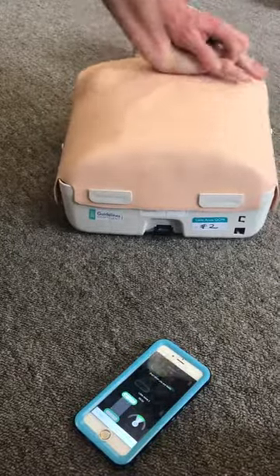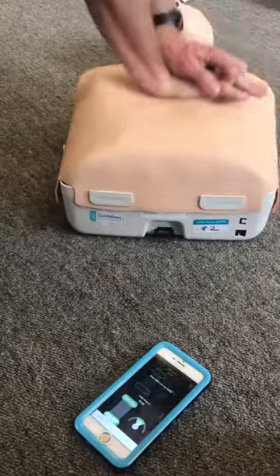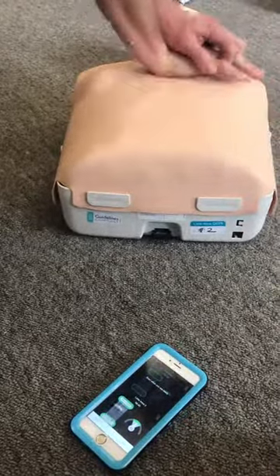You can see from the screen here that it's measuring the depth that I'm pushing on the mannequin, and that my rate of chest compression needs to be inside that green section there on the right-hand side. So if I go too fast, I'm up there, and if I go too slow, I'm sitting outside that green. In order to get 100%, I need to be in that green zone for the entire minute, and I need to get the right depth of chest compression as well.